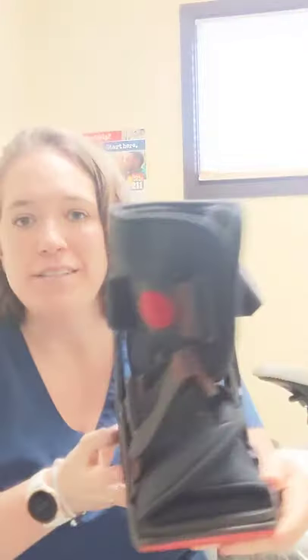Hey everyone! I want to show you how to use a pneumatic cam walker. This is one of the types of cam walkers or cam boots that we offer in the office — this is a short one. I want to show you some features about it so that when you're put into one, life is a little bit less stressful because you know what to expect.